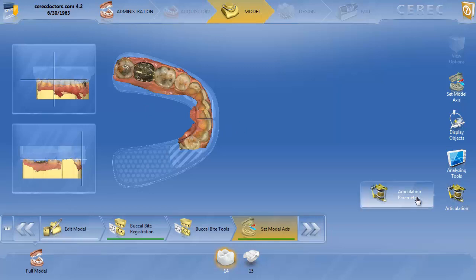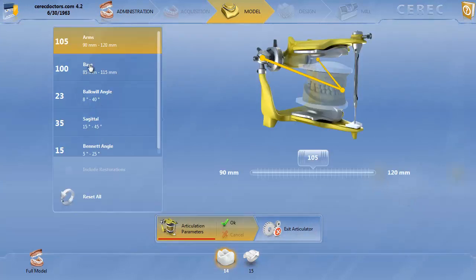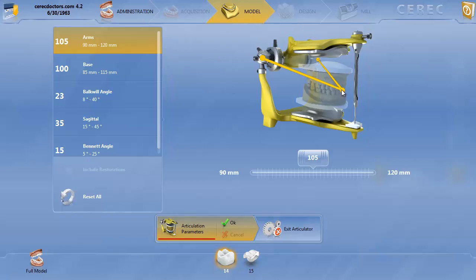The third and last thing is the actual average value articulated parameters themselves. If we go into articulation on the sidebar and click on articulation parameters, these are the actual parameters that are preset. In my opinion, there's really no reason to change these. How this is functioning is based on what we call the Bonwill triangle. In this animation, you'll see a triangle from the lower central incisors up to where the condyles are. These are the condyles, these are the lower central incisors, and this is the Bonwill triangle.